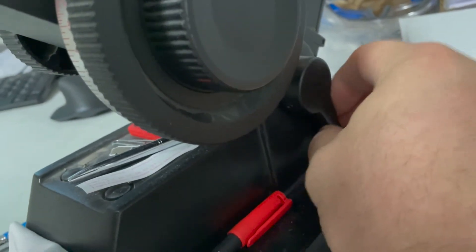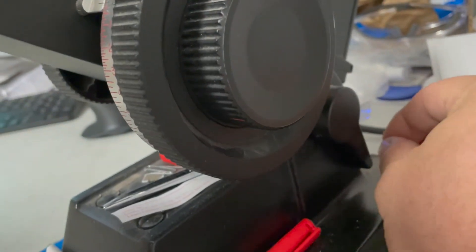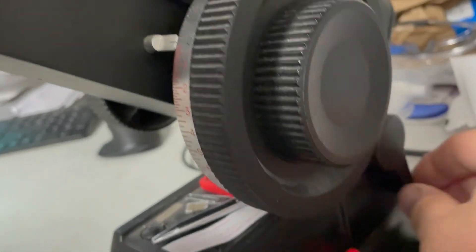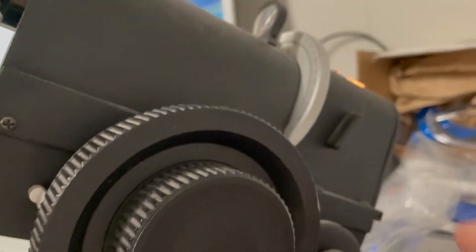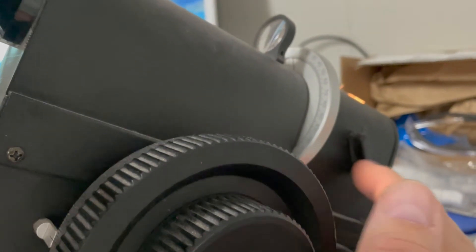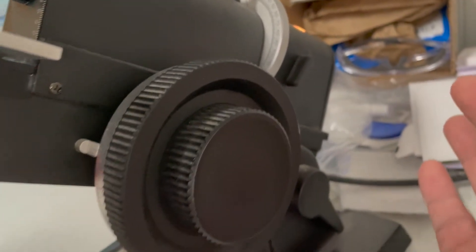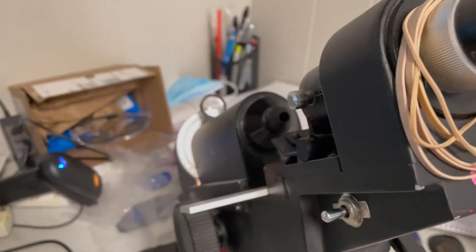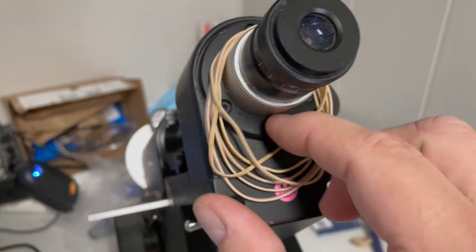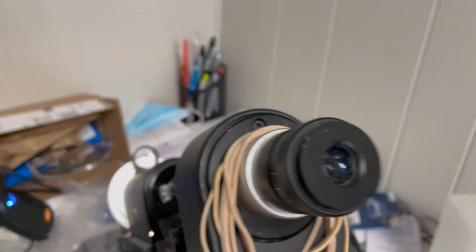This is used if you want to lock in place the movement of it. You can use this to release it, set the height where you want it, lock it in. And this is a color switch if you want to switch it to red or to green. Green is usually preferred but you can use whatever color you want.